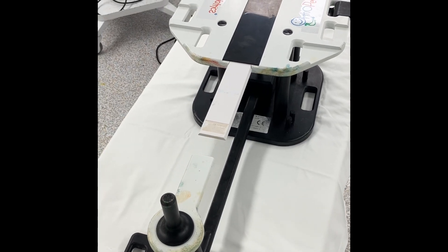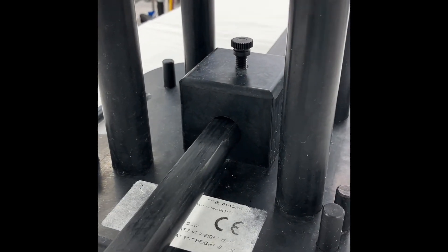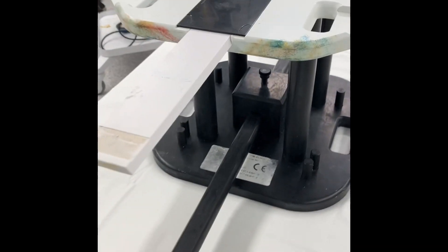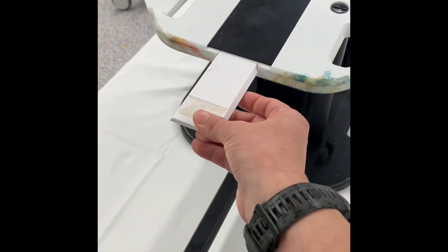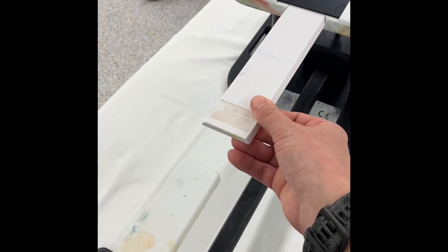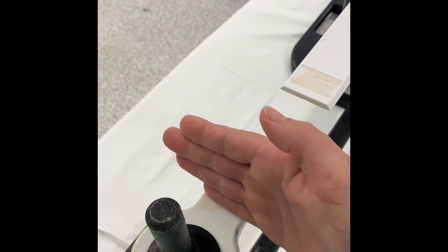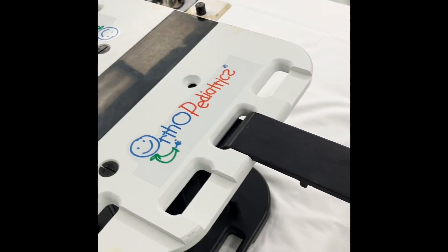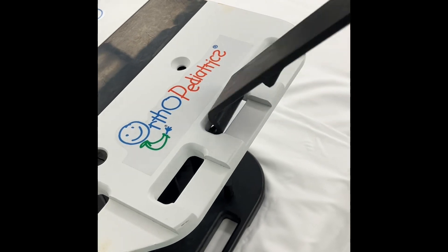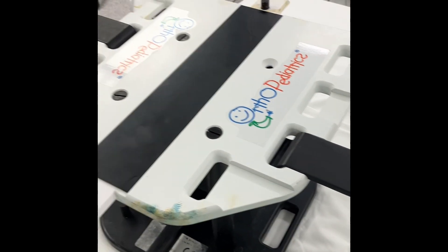This is what the bed looks like put together. The bar down here at the bottom just slides in and you can tighten it — it's totally adjustable for the size of the child that you have. This piece slides in and this is what the child's butt will actually be laying on. You want their crotch to basically be right here, and a leg will go on either side of this piece. These holes are for the arm boards, so depending on the size of your child, you can move them to whatever hole is appropriate.